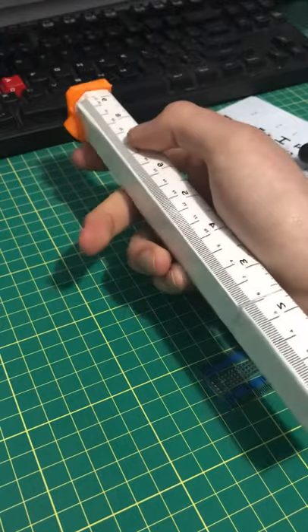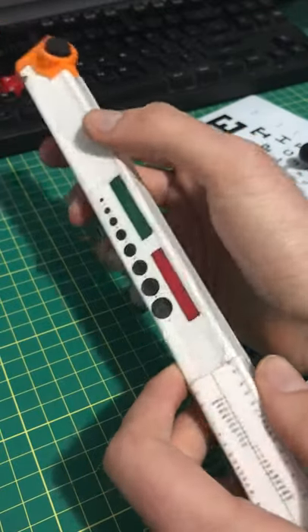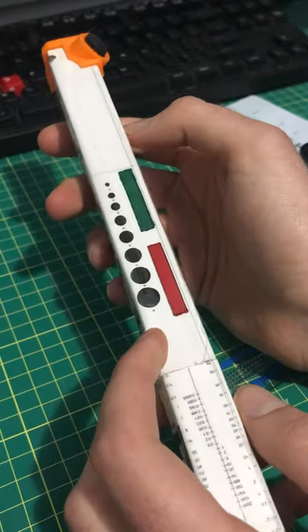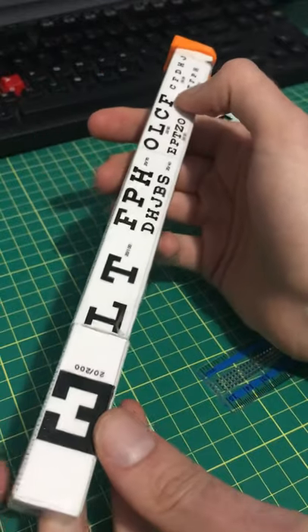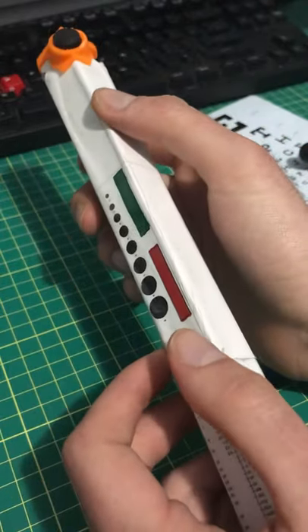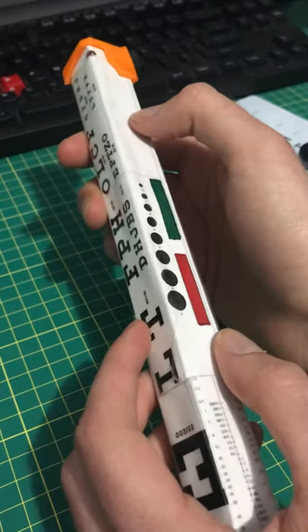Just a few other things I thought were interesting about it: I still have a lot of space left over. So if you have any ideas for reference charts or clinical decision tools you think might be useful, I can put them on here — I can make this customizable. I'll provide the 3D printed STL file so you can 3D print your own, remix it, change it, and build your own, instead of paying these companies for things you frankly probably don't even need.